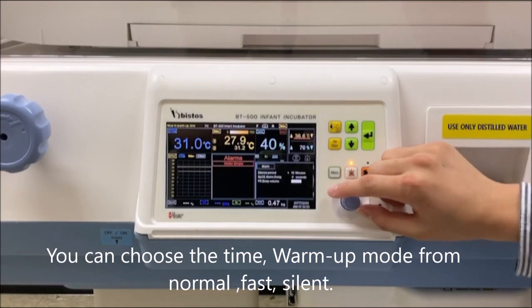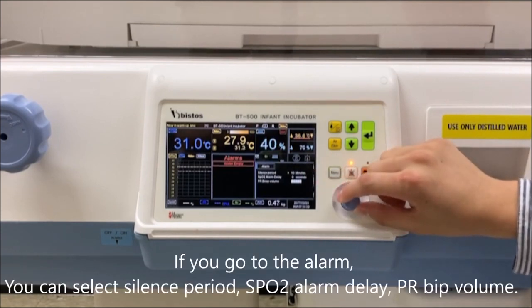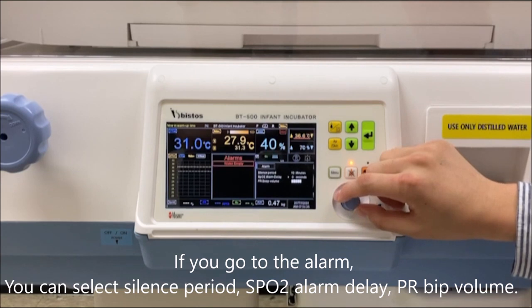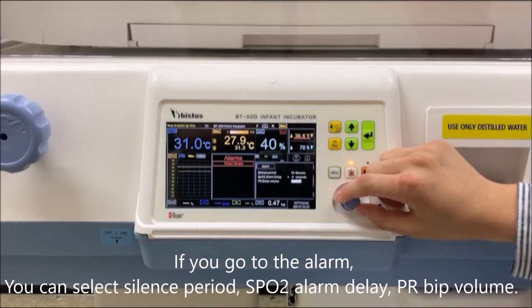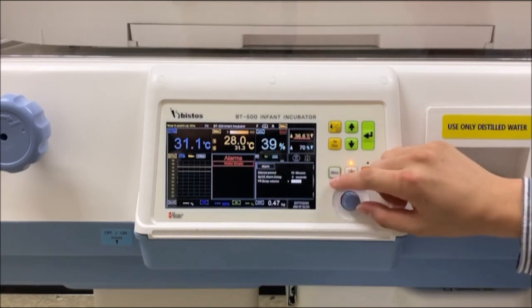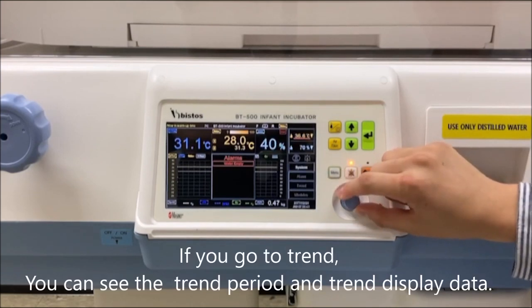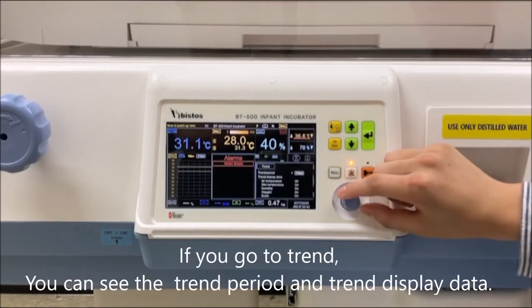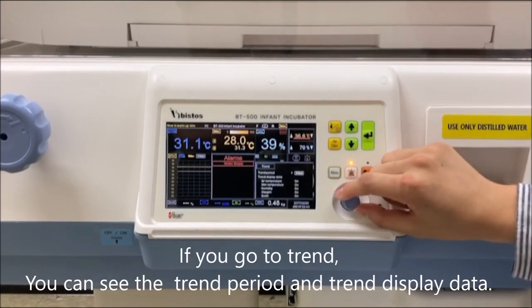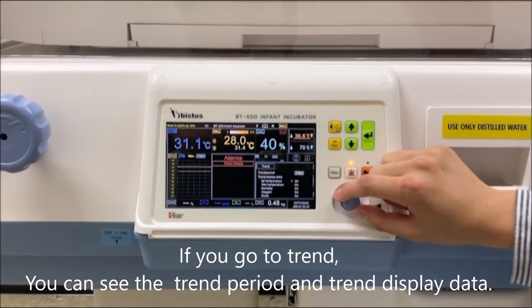If you go to the alarm, you can select the silence period, SPO2 alarm delay, and PR beep volume. If you go to the trend, you can see the trend period and trend display data.